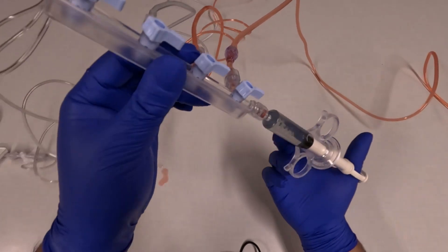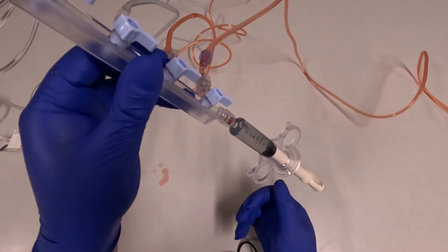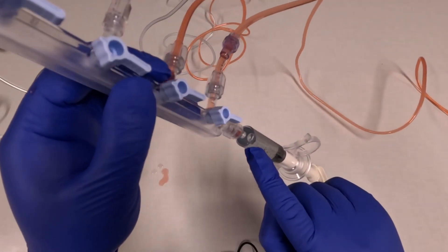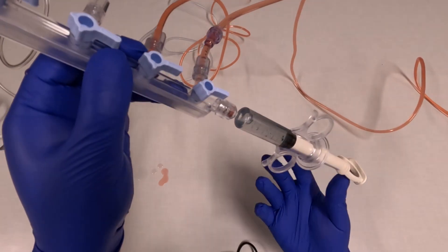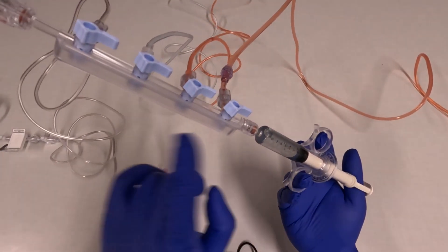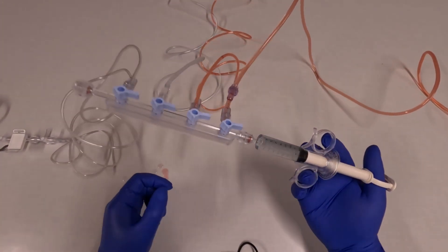to the top and what I inject will be fluid, not air. You can see if the manifold is in an upright position like this, the air sits close to where it's injected and that can go into the patient.